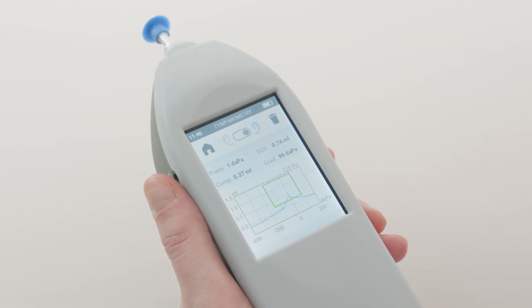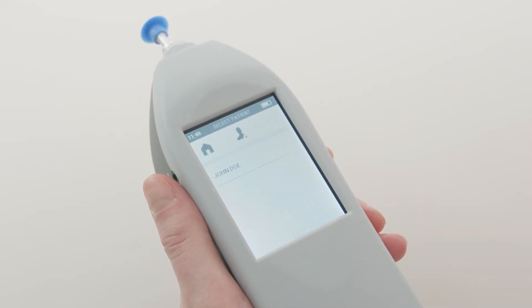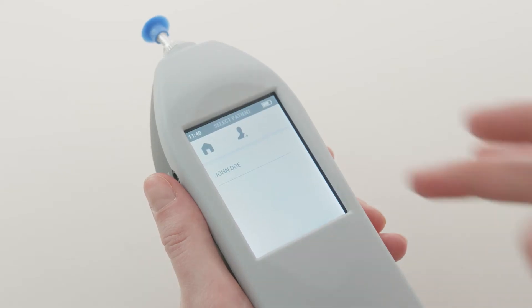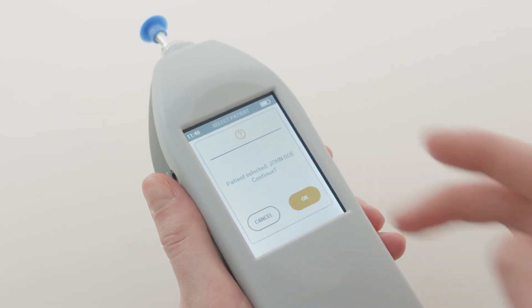After finishing the tests, go back to the home page simply by pressing the corresponding icon at the top left of the screen. Here you can save your completed exams by pressing the floppy disk icon at the bottom right of the screen. You can create a new patient or associate the data with an existing one.